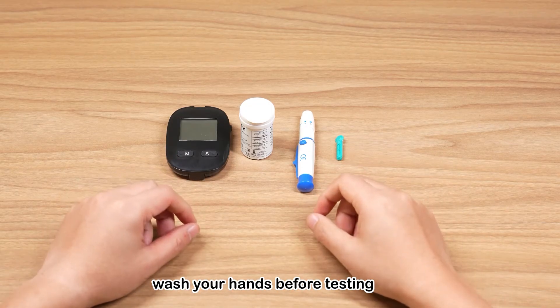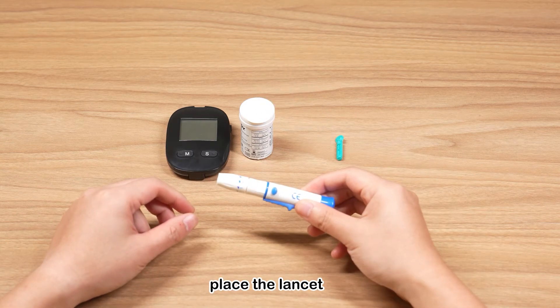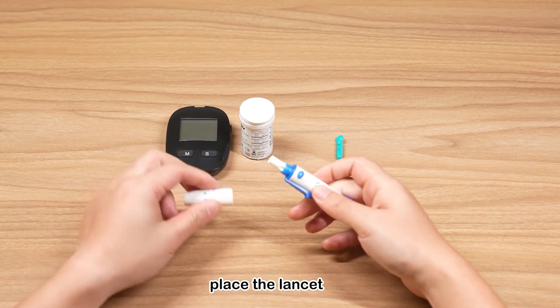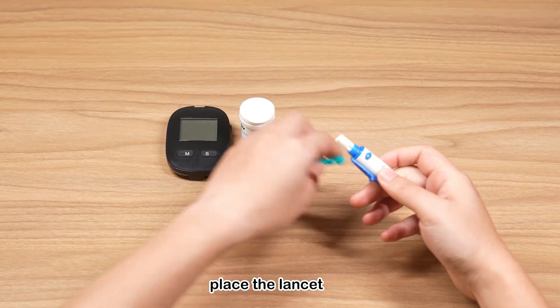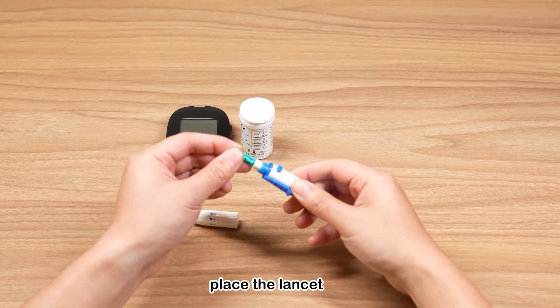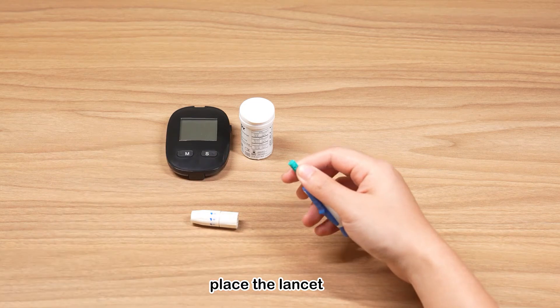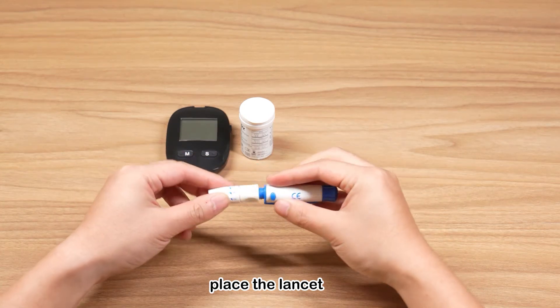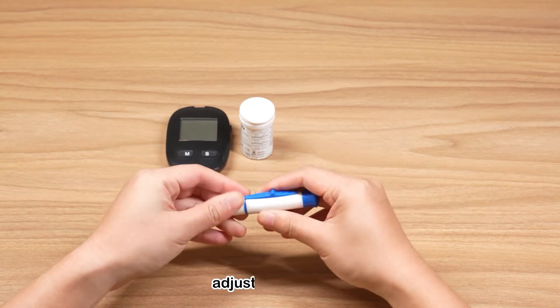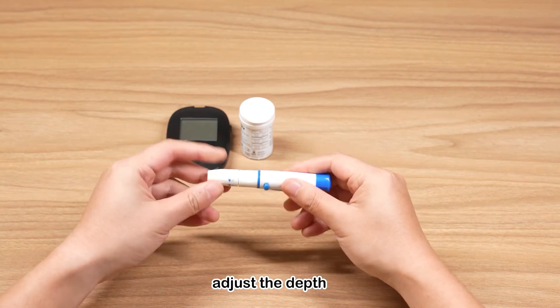Wash your hands properly and wait until they are dry. Put the sterile lancet on the surface. Adjust the depth of the lancing device.